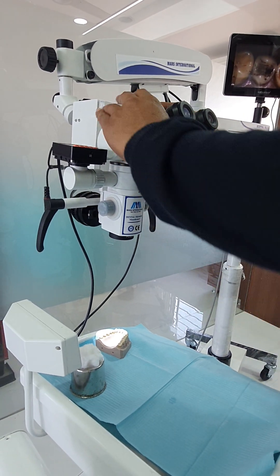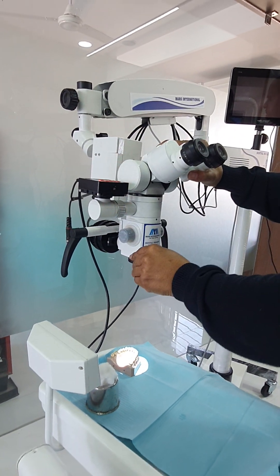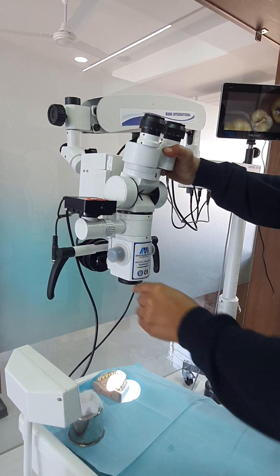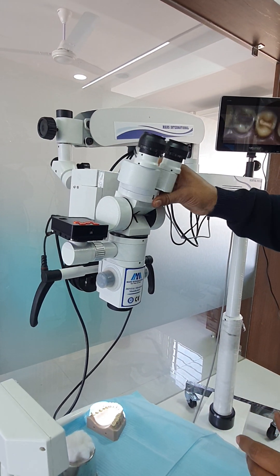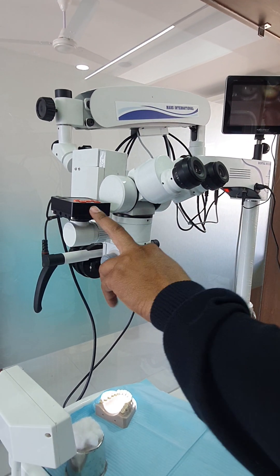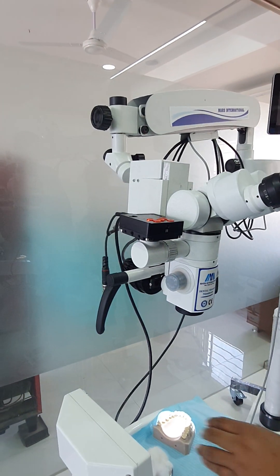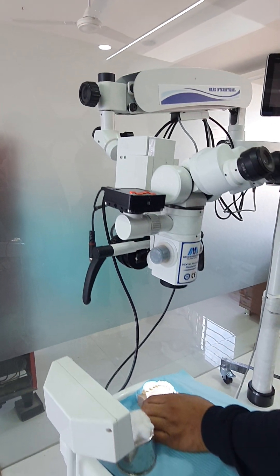This is the tilting head, which can be moved from 0 to 180 degrees — you can move it to any angle. It also has an HDMI camera for the recording and imaging system.